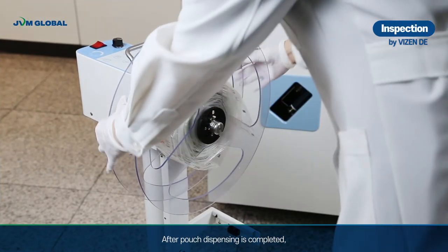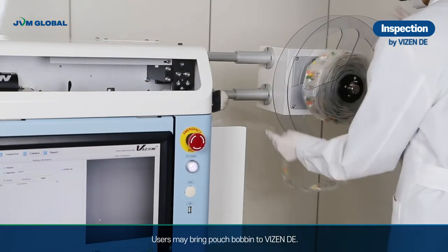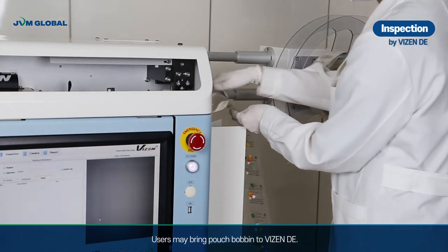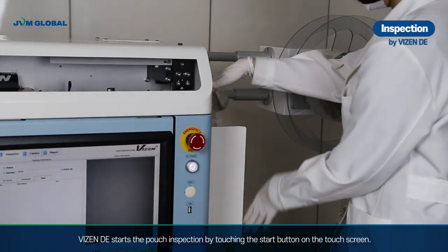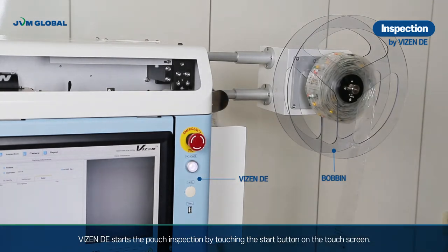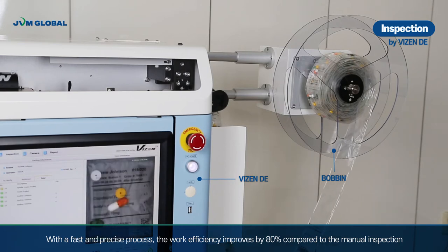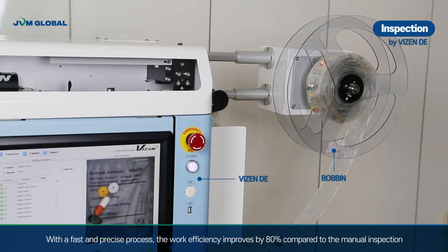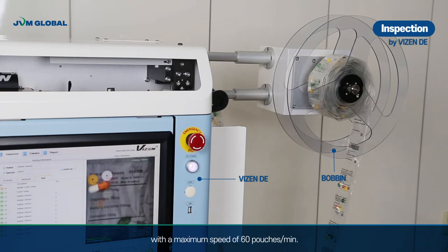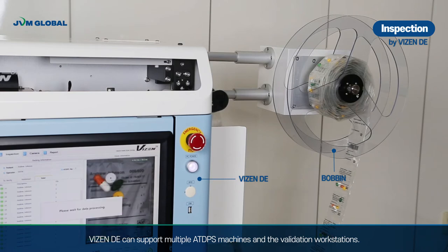After pouch dispensing is completed, users may bring the pouch bobbin to Vizen DE. Vizen DE starts the pouch inspection by touching the start button on the touchscreen. With fast and precise processes, work efficiency improves by 80% compared to manual inspection, with a maximum speed of 60 pouches per minute. Vizen DE can support multiple ATDPS machines and validation workstations.